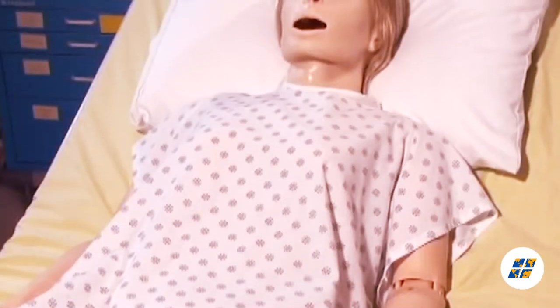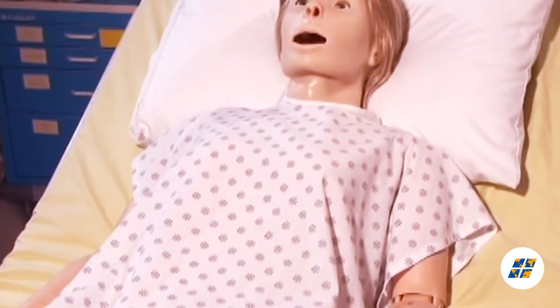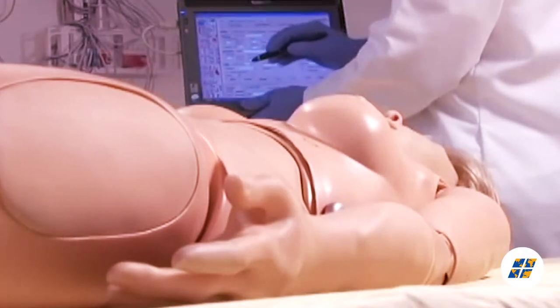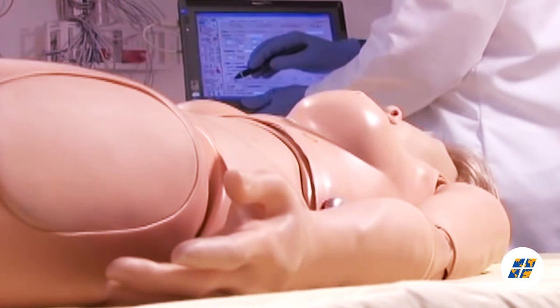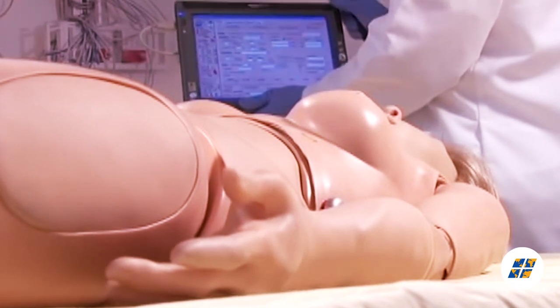Suzy's control software is easy to use and intuitive. The tablet PC can be carried like a notebook, and the one-handed operation with the stylus adds to the portability of the system.